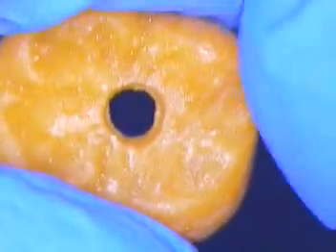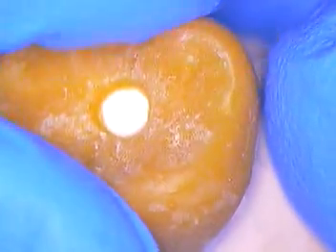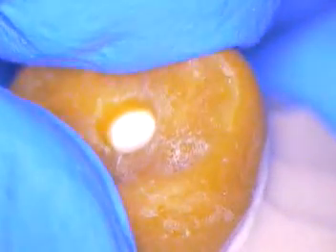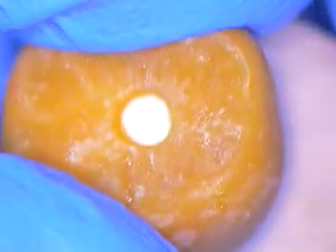This is just a throwaway example to show how well this thing seats — without any rocking whatsoever. How many times have we placed wax on a die, took it off, and had to reseal it, knowing there's a little bit of play after it's cast? These things are invested and pressed. They are amazing — by far the elite of technology, in my opinion, when it comes to pressing ceramics. So those are some little tips about this new printing wax pattern phenomenon that's going on.